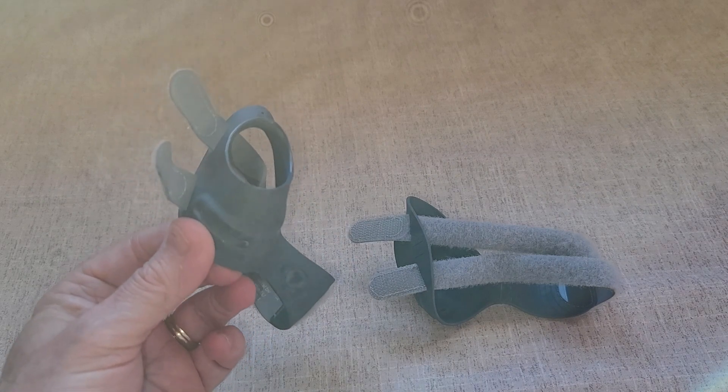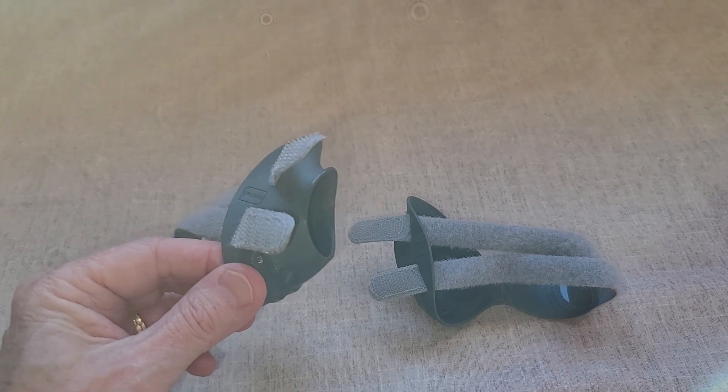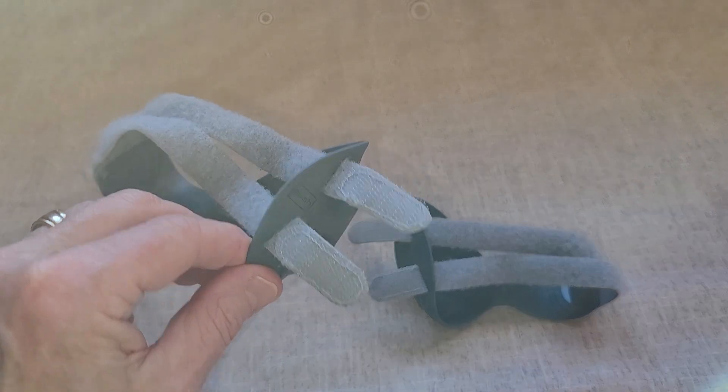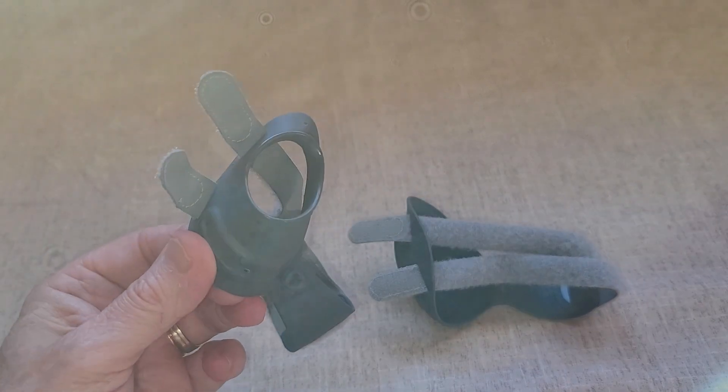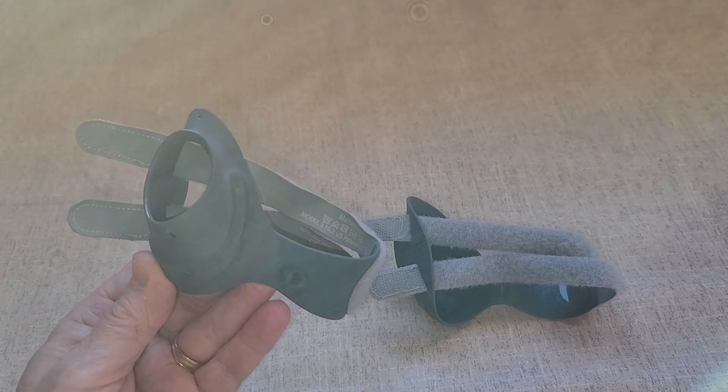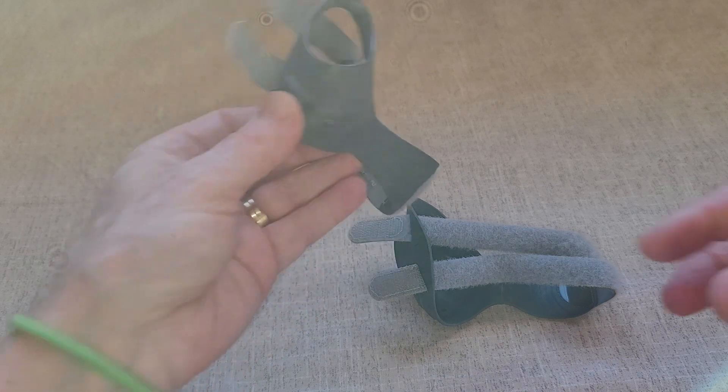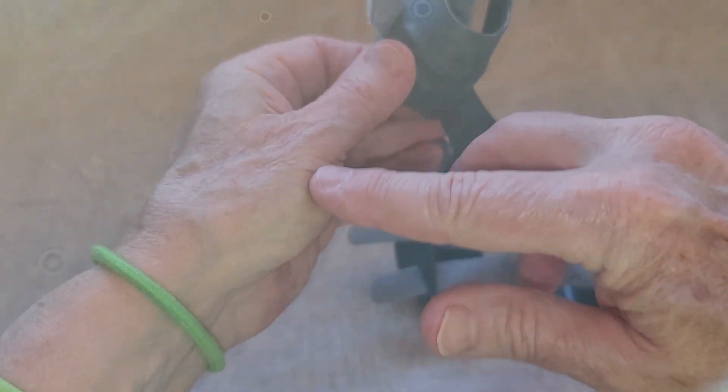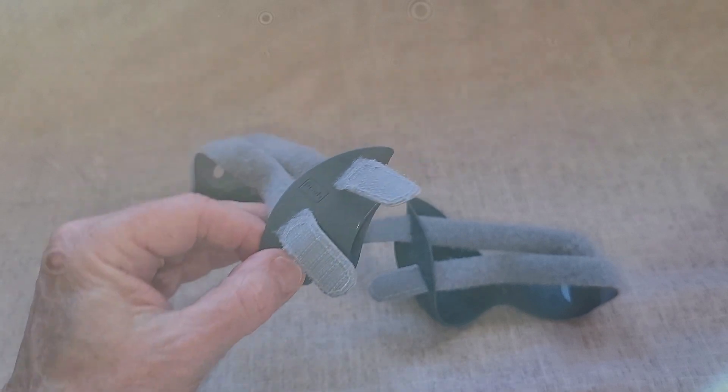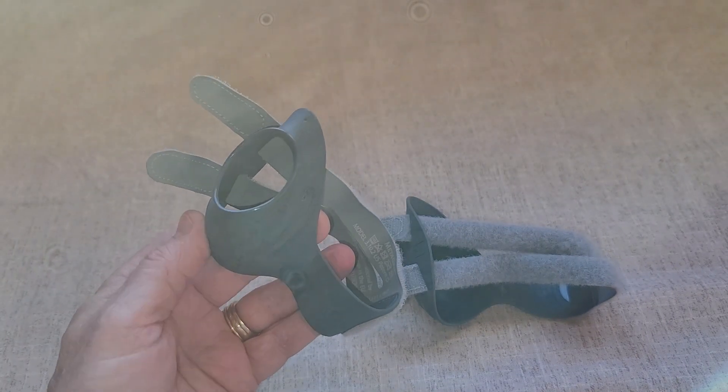I do a lot of work with my hands using tools where I'm gripping, turning and twisting with a screwdriver and other tools. What I found is that my thumb was getting sore right in this area, so I wanted to try these braces out.